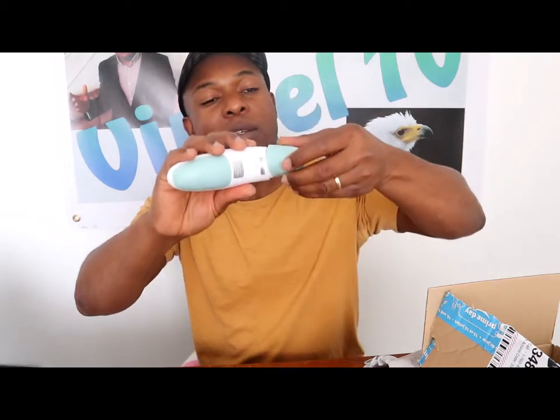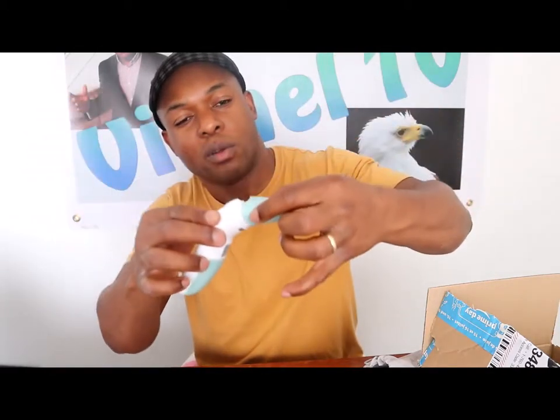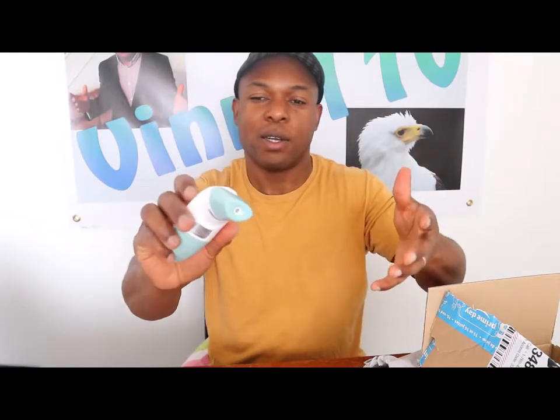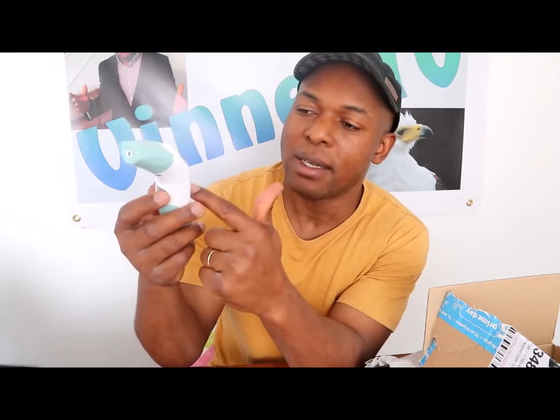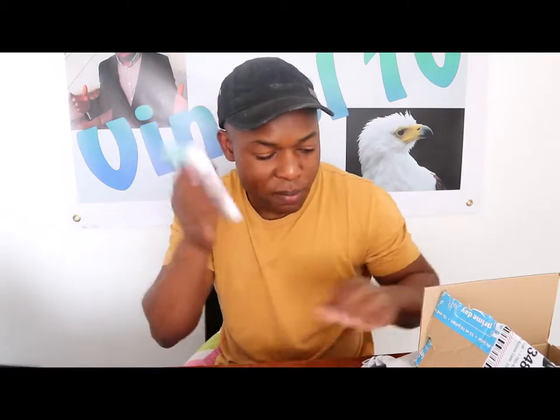Once you've done, take it off and dispose of it. To put it back on, press and put it down, making sure it's aligned. You can also change it between centigrade and Fahrenheit — in the UK we use centigrade, but some countries use Fahrenheit. You can actually use it from a distance without touching your body — it will still show you a reading.